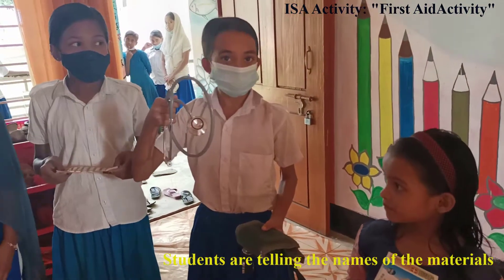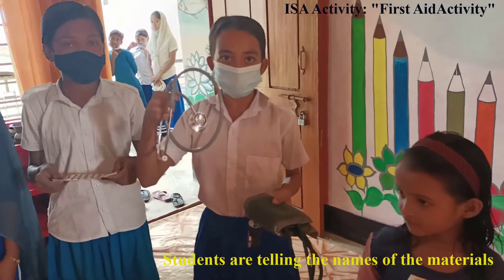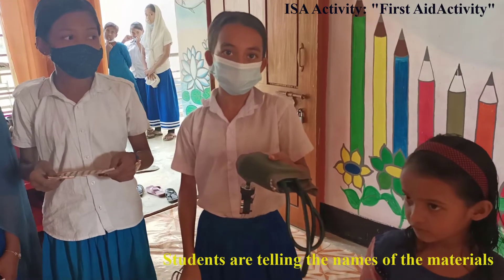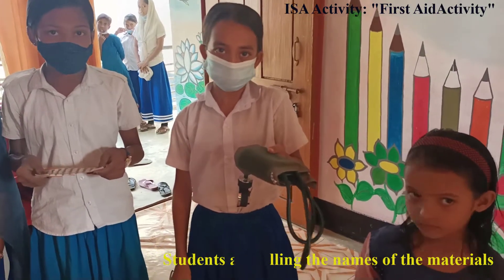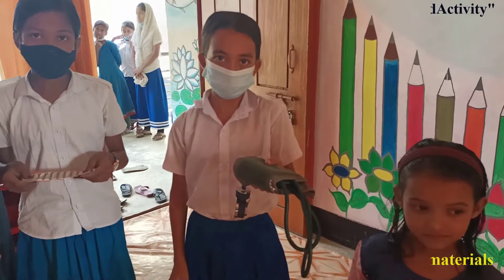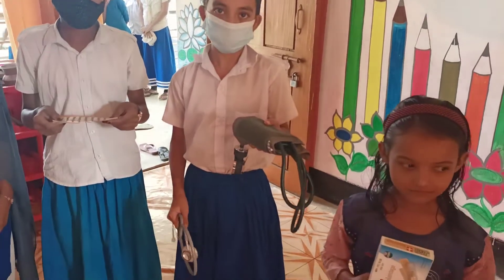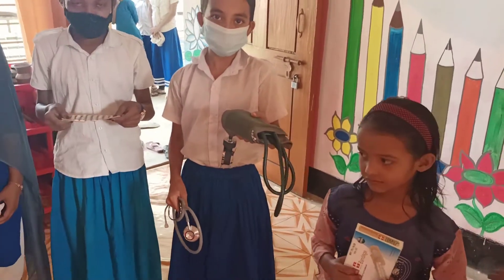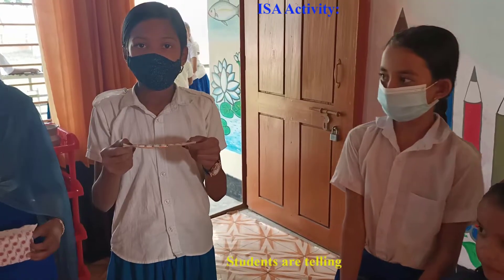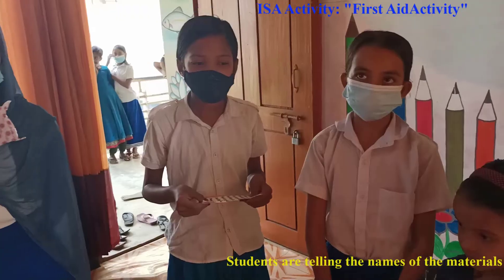It is a stethoscope. Stethoscope. And it is a sphygmomanometer. Yes, very good. Stethoscope and sphygmomanometer. Yes. What is this? Strip. Very good.